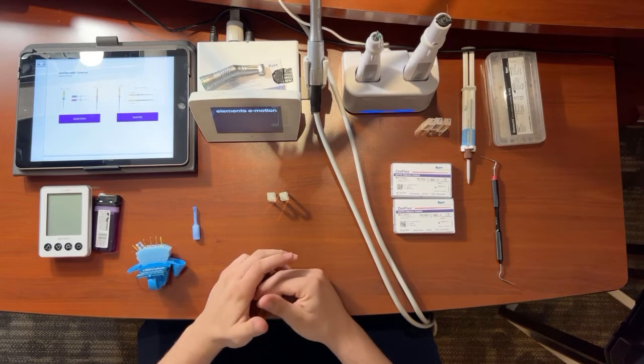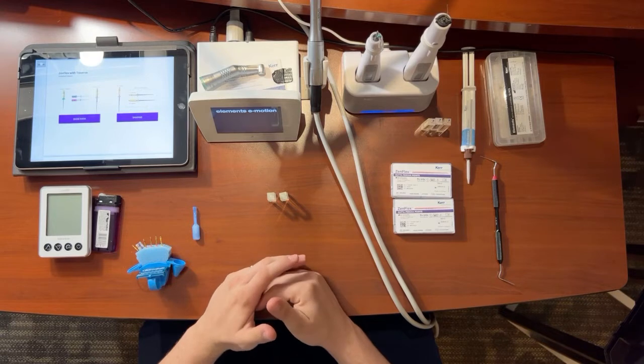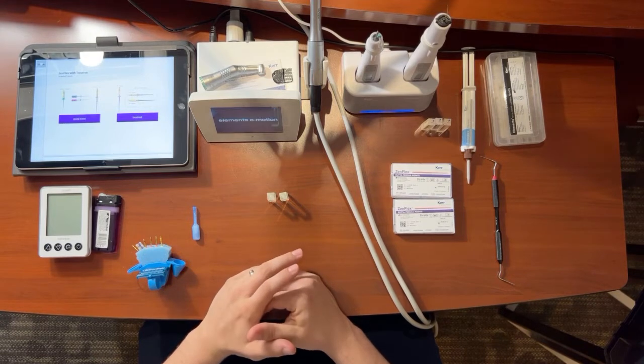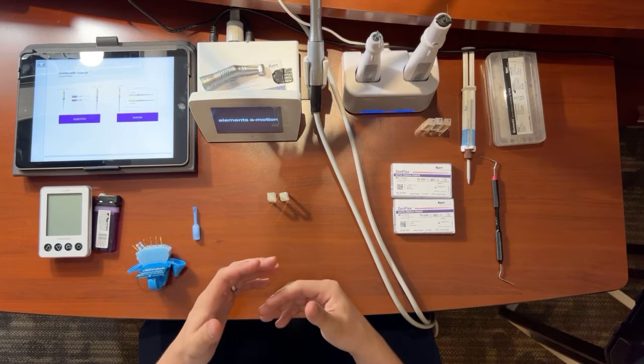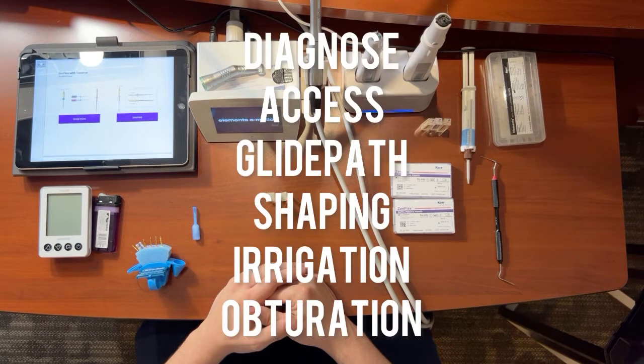So when we talk about endodontics or the endodontic procedure, there's a few major areas that we have to discuss. The way I remember it is DAGSIO: diagnosing, accessing, glide path, shaping, irrigation, and obturation.